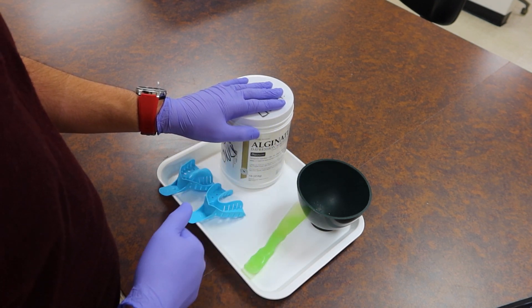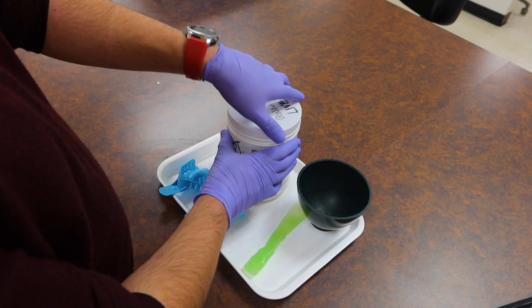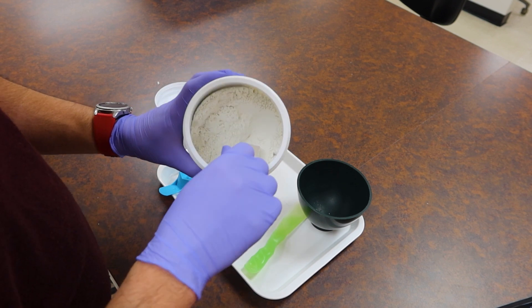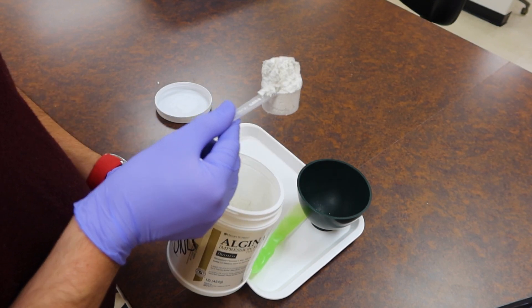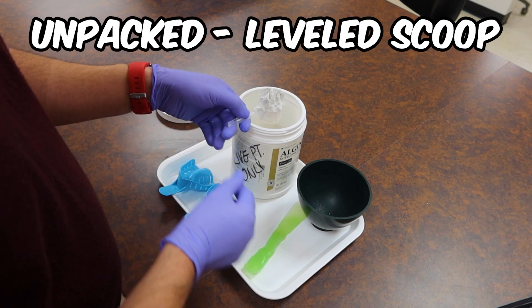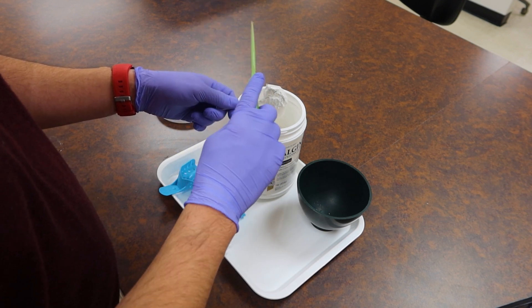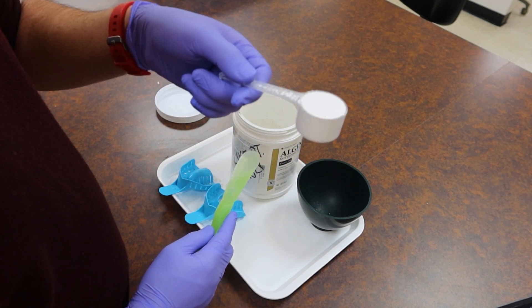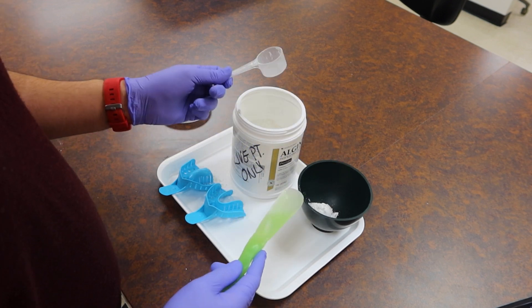Because I'm a rock star — no retakes, one time, one go. Going over into the actual impression material, once you've fluffed your jar, put the lid off to the side. Taking your scoop, we're going to take a nice heaping scoop. But we're not going to use a heaping scoop — we're going to do an unpacked level scoop so that we have the proper water-to-powder ratio. Take your spatula, tap your scoop to shift the void so everything is filled, give a couple of love taps, then scrape it off. Now you have a nice level scoop of material to go into your bowl.